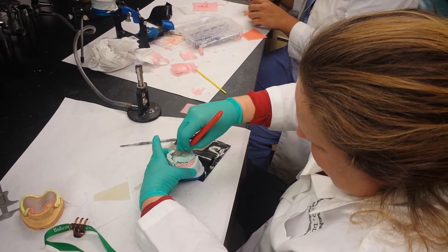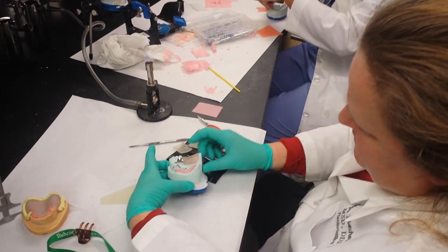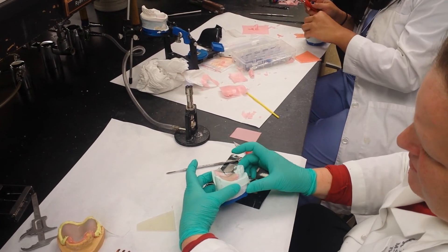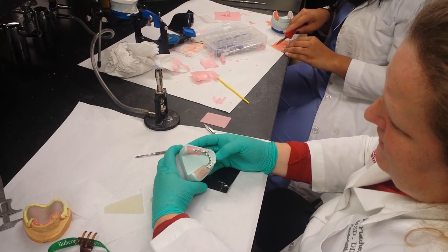I'm taking the excess away, so we have some space here. We have this pushed in here, and we have it cut away there. Then we want to do the same thing on the other side, so we'll have a tray on each side.